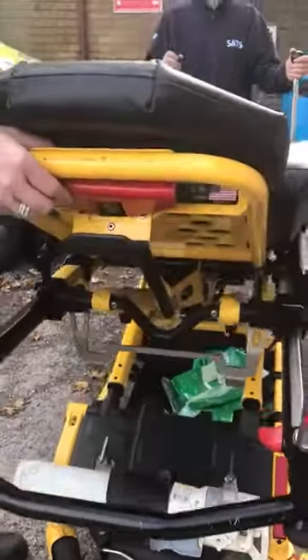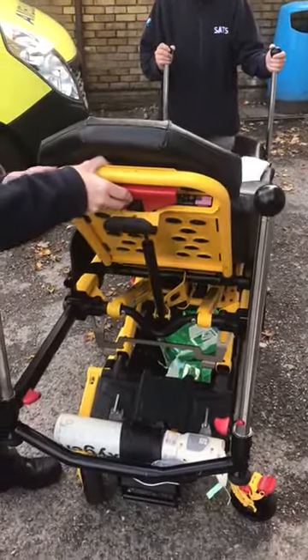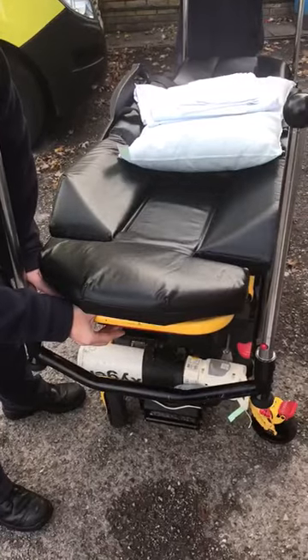Press, and then that will lift up, and then press again. Once the patient's weight is on it, it's a little bit easier to go down, and then release when you want it to whatever point, and that won't go any further.